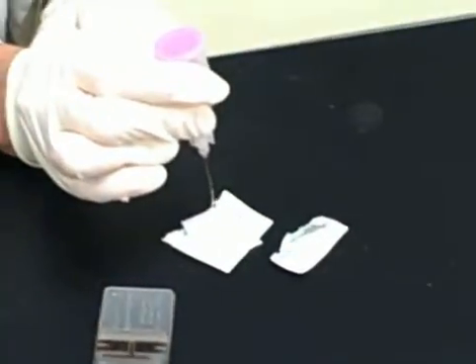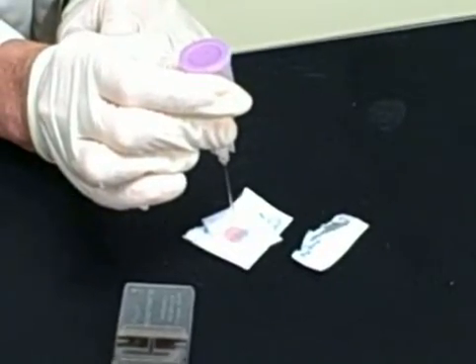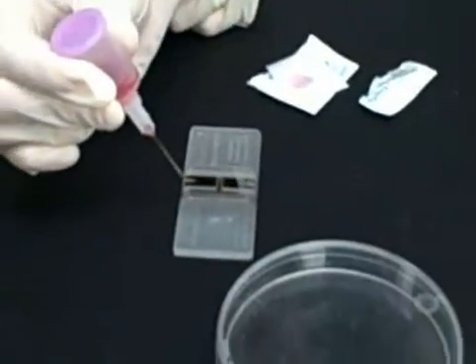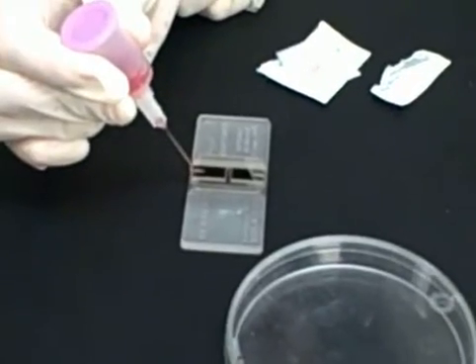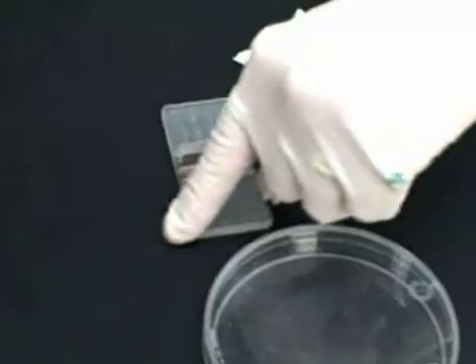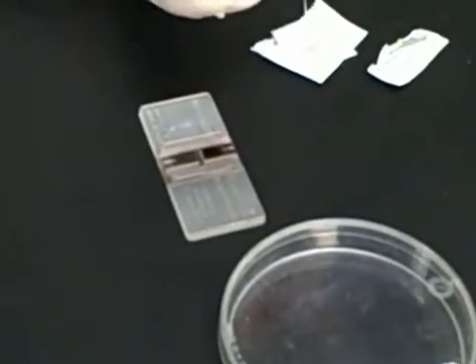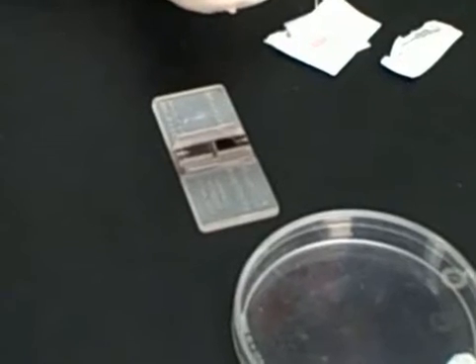Expel a couple drops of your diluted specimen onto the alcohol prep before loading the chamber. Put a small drop in the trough area and it will fill by capillary action. You don't want too big of a drop or you'll flood the chamber.